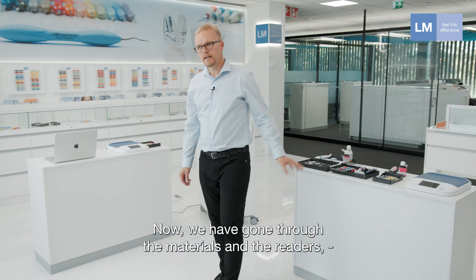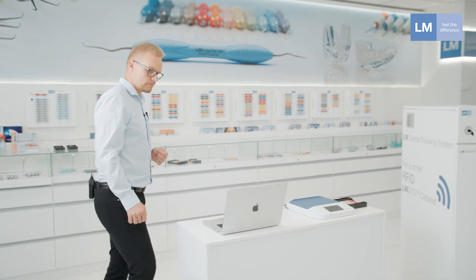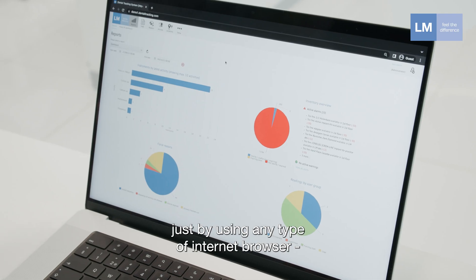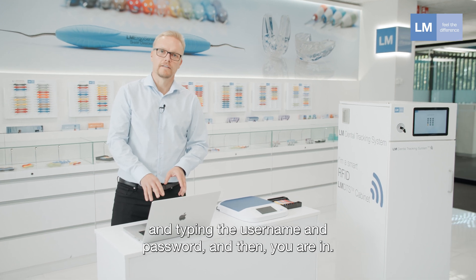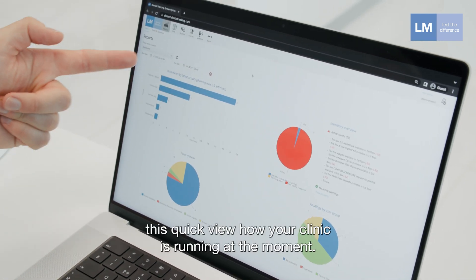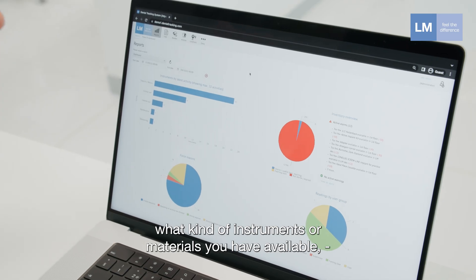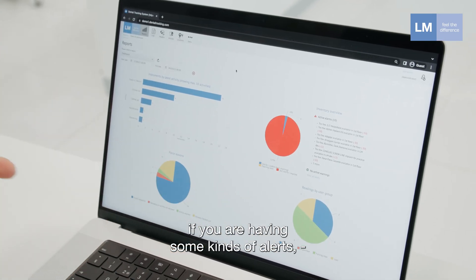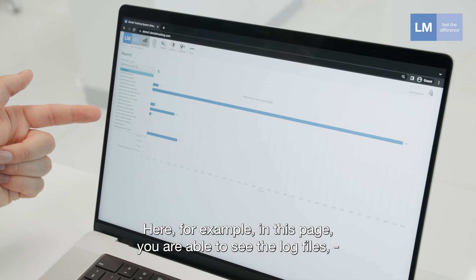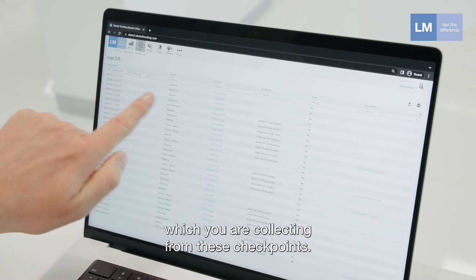Now we've covered the materials and readers, so let's look at the software. The software runs on a cloud-based server and you can access it from any internet browser by entering your username and password. Right from the dashboard you get a quick view of how your clinic is running — the latest activities, available instruments and materials, and any alerts such as items about to expire. In the log files page you can see the raw data collected from all checkpoints.